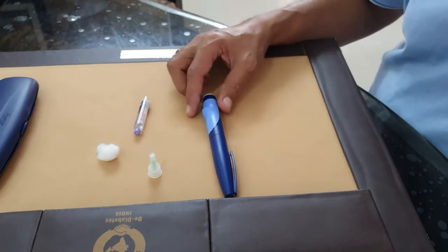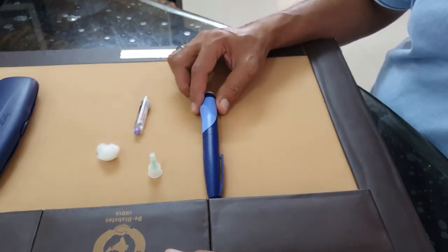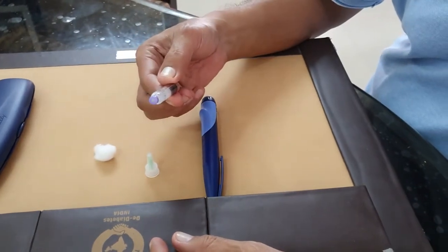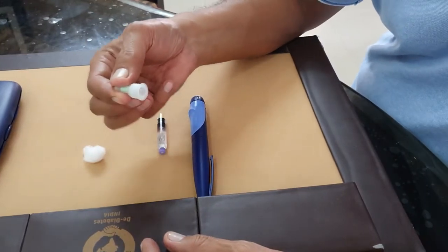Today I'm going to tell you how to use the insulin pen. For that we need one insulin pen like this, the insulin cartridge, a needle for the pen, and a cotton swab to inject.